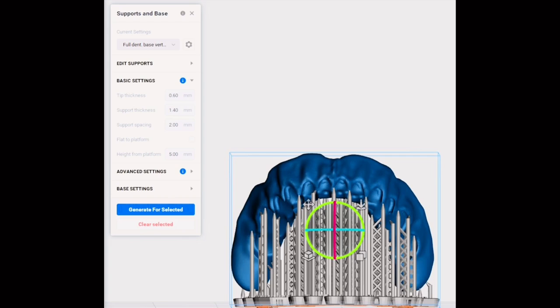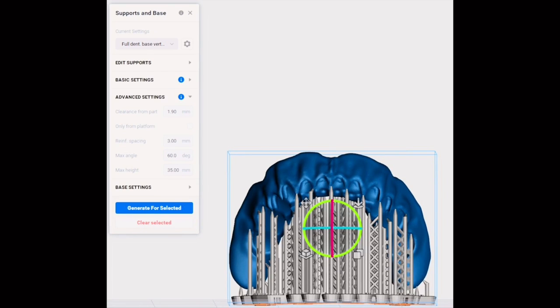If we're printing permanent dentures we print with the intaglio surface unsupported so that they're not going to mess with the fitting surface. The support settings are visible here and again they will just peel off leaving tiny little goose bumps that could be easily polished away.